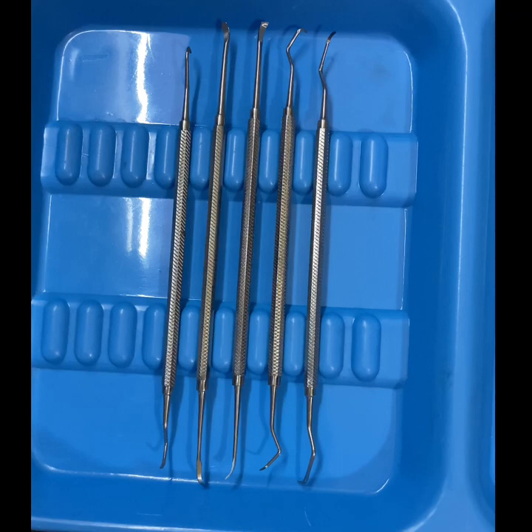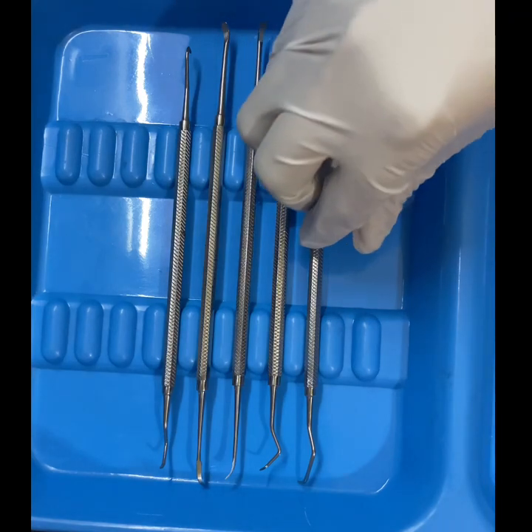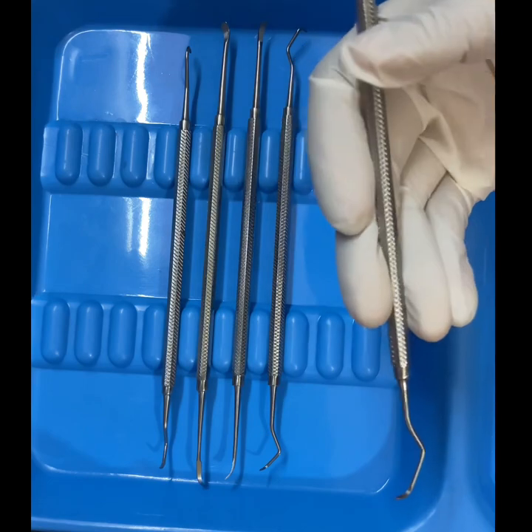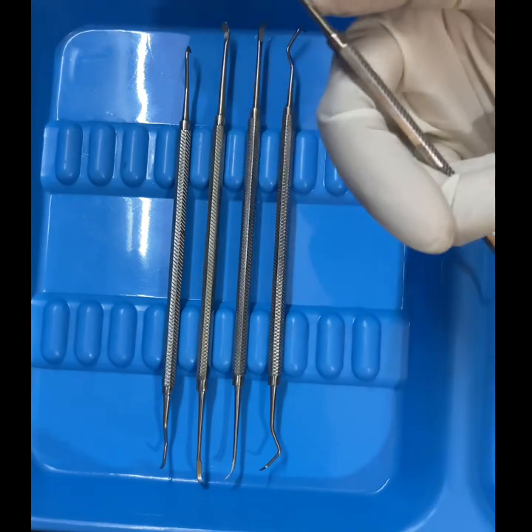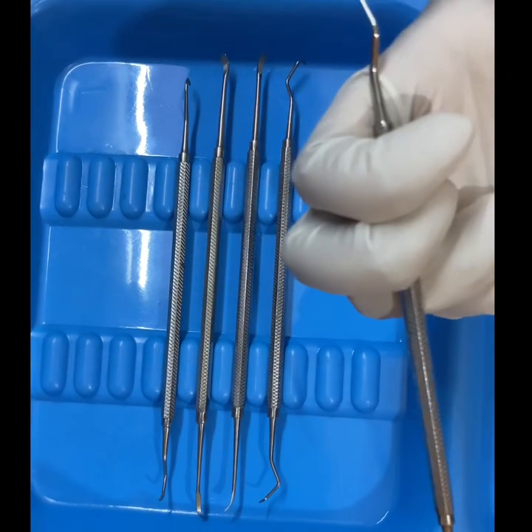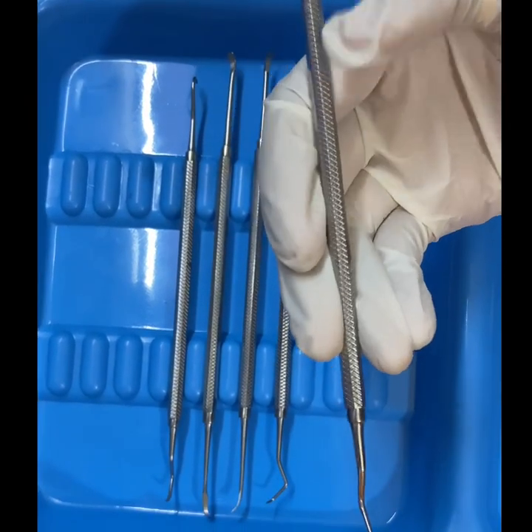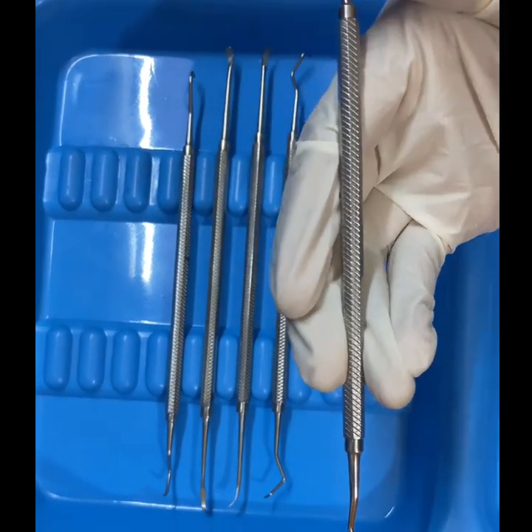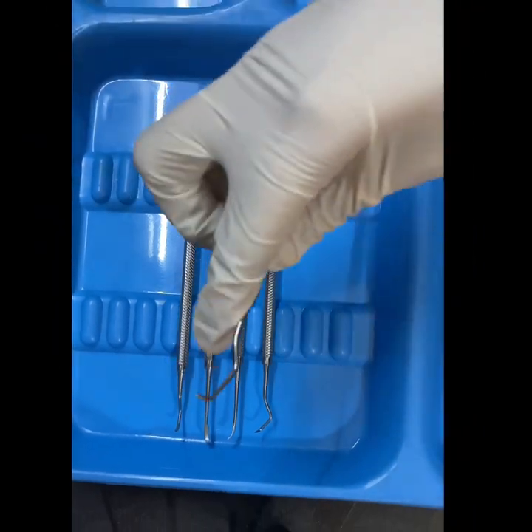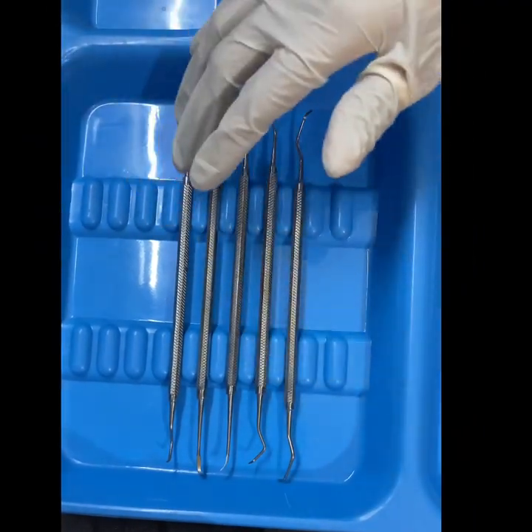Now a brief introduction about the parts of this periodontal instrument. First, this one is the handle, this one is the shank, and this one is the blade — handle, shank, and blade.